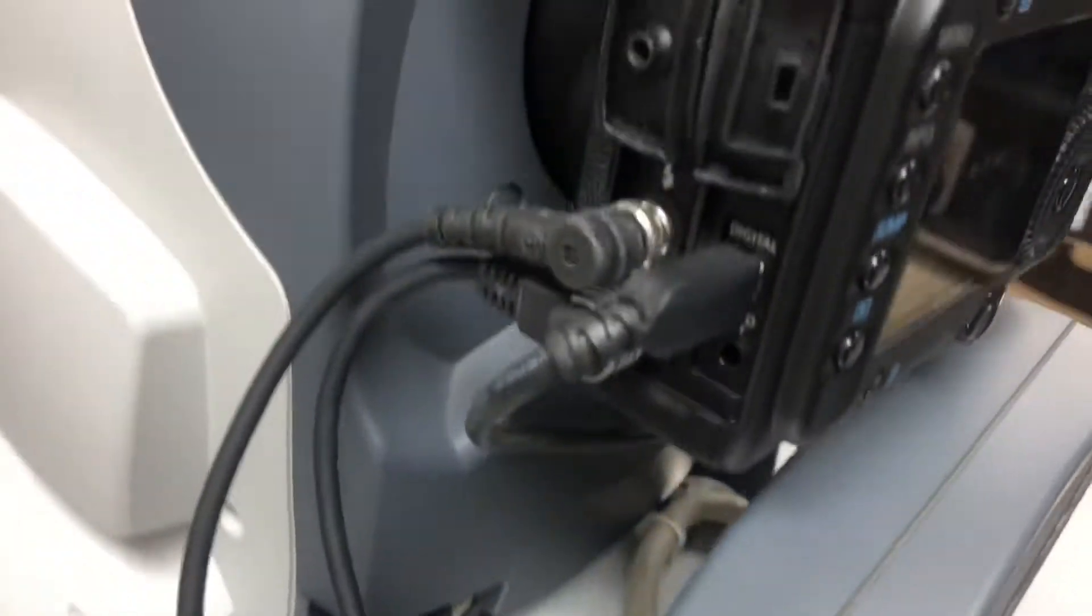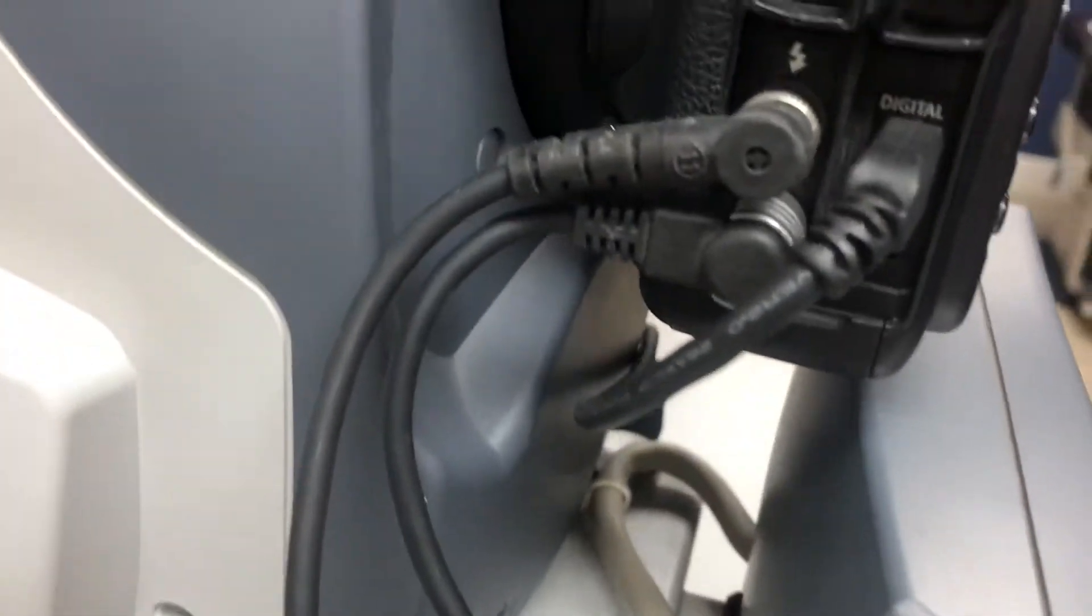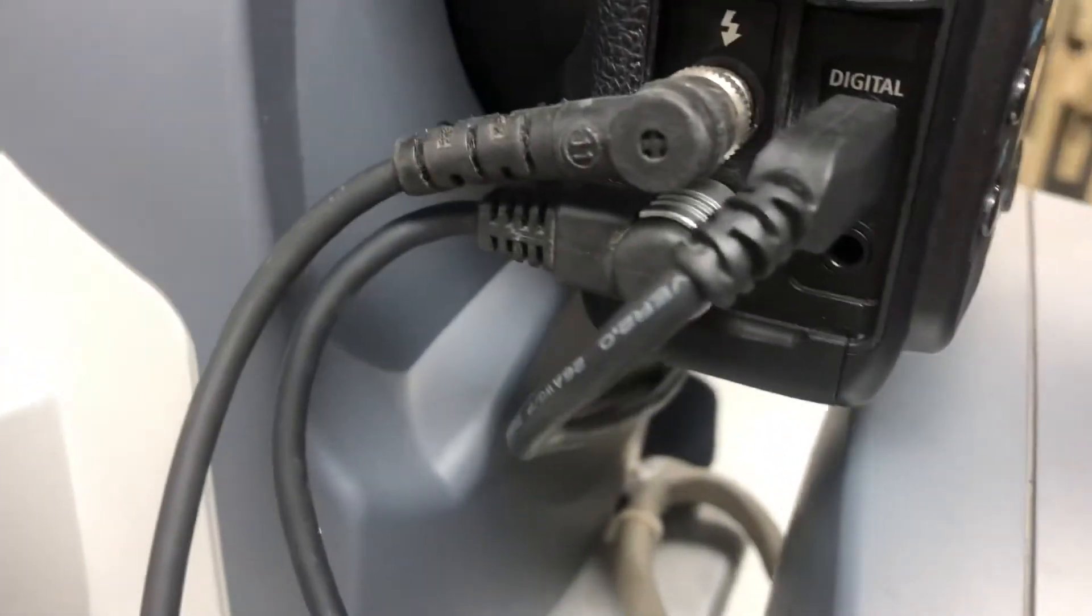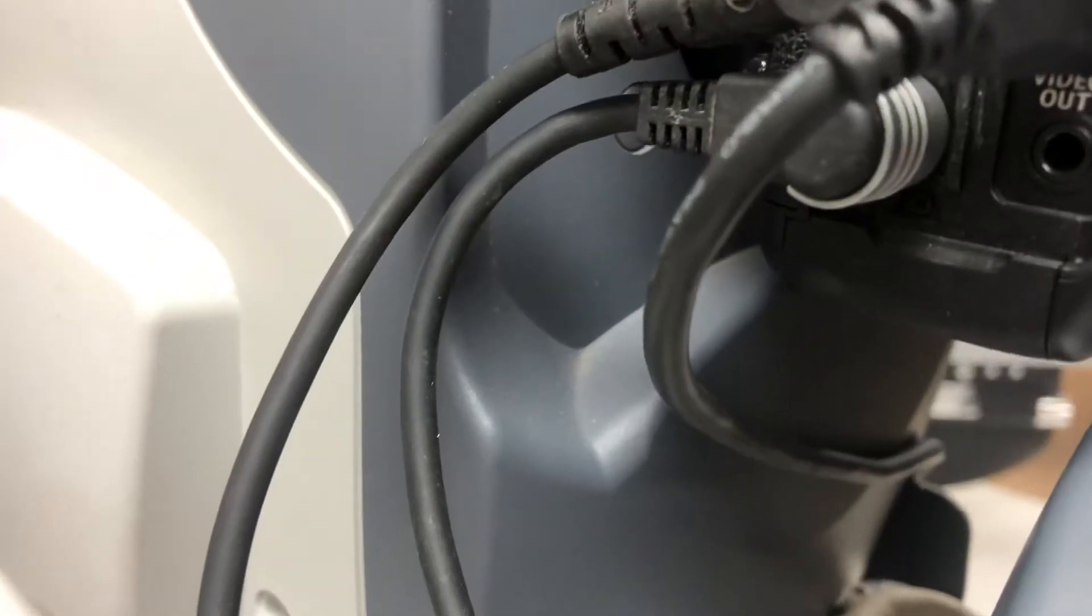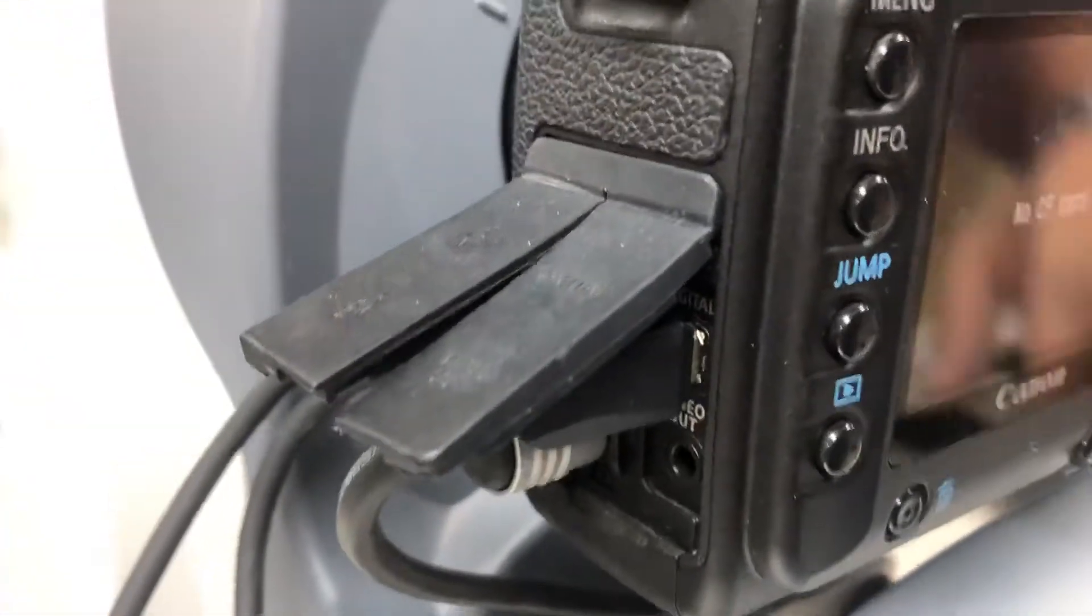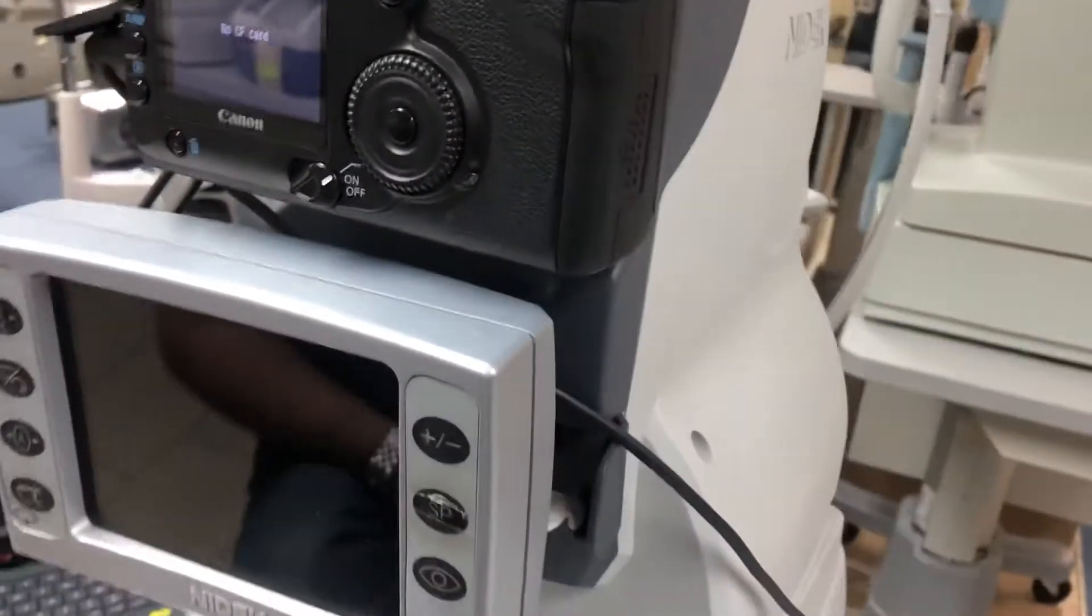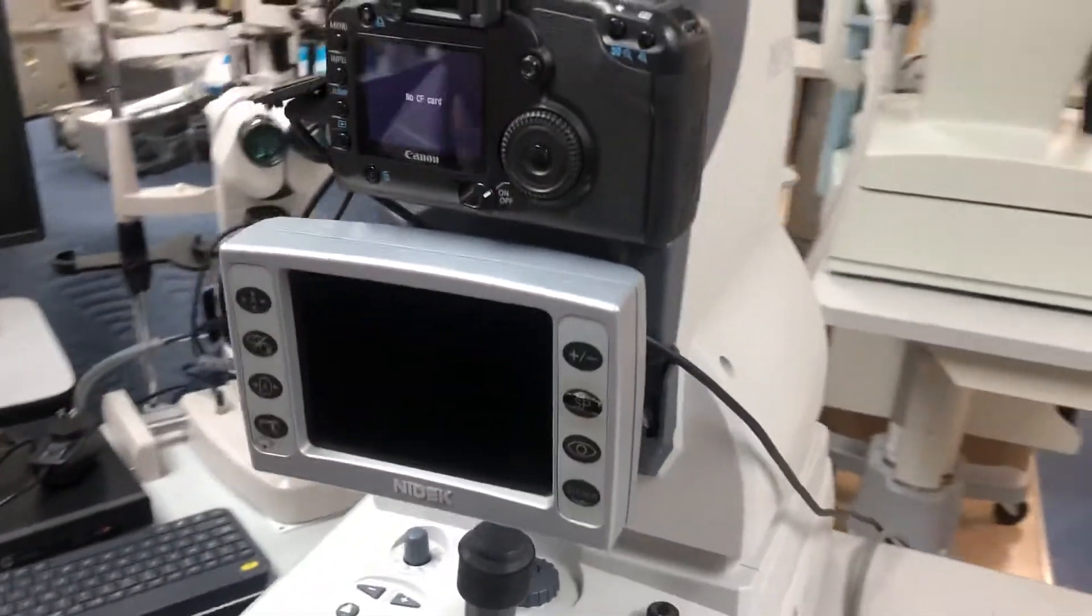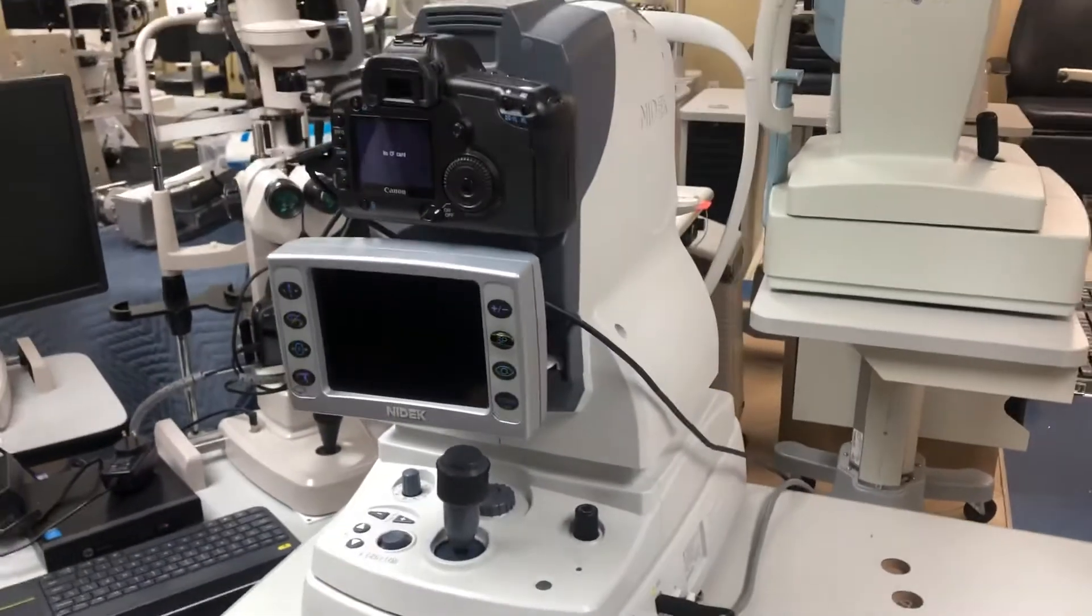Here you have the connections on the camera. It's very simple - each one has its own shape and connector, so there's no confusion. We're going to turn on the system and show you how the software works, a very basic guide.